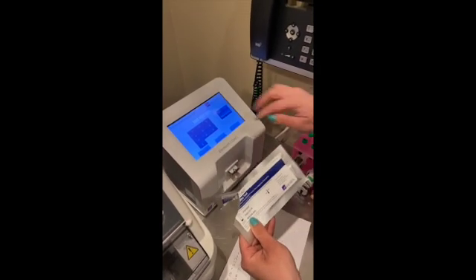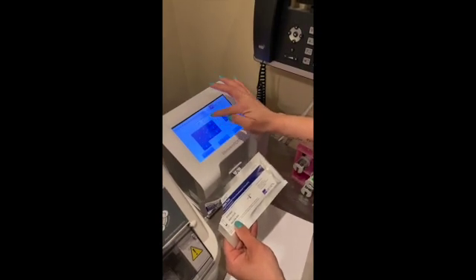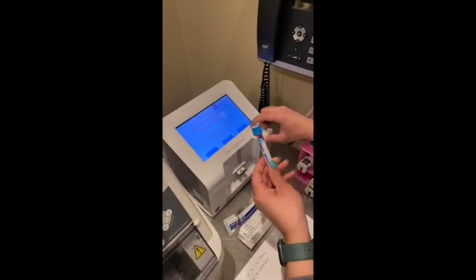Okay, so our cartridge code is this number. So 403 234 400. Done. Yep, it's a citrate tube, so confirm.